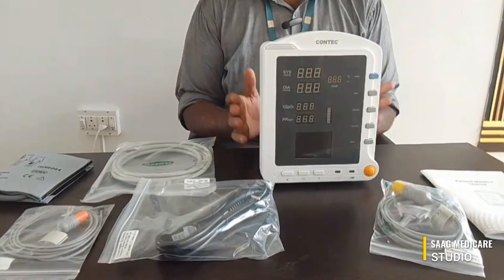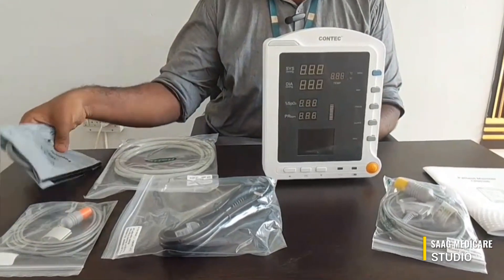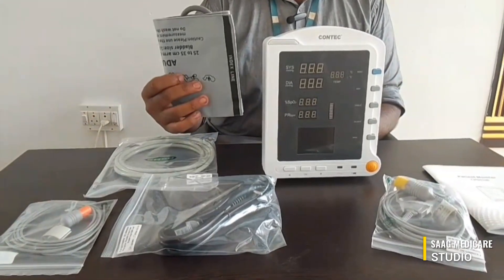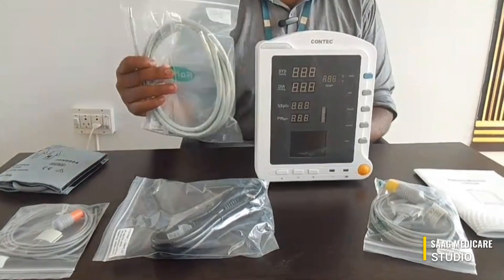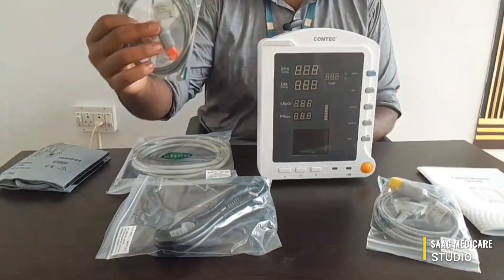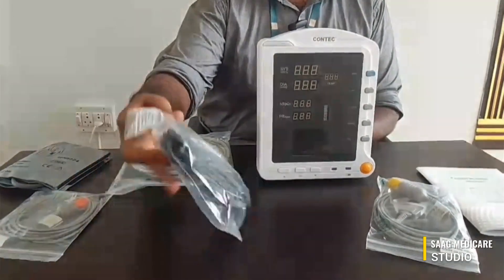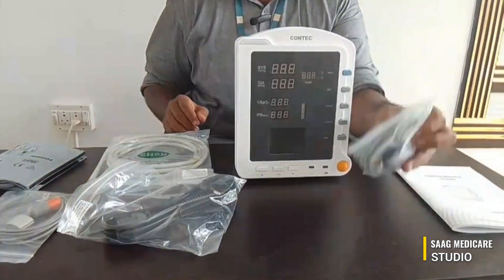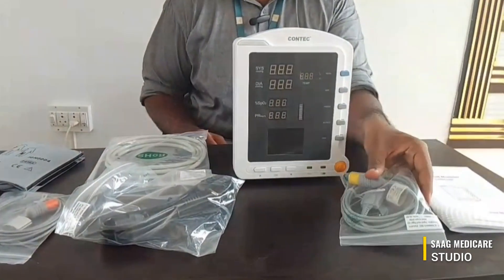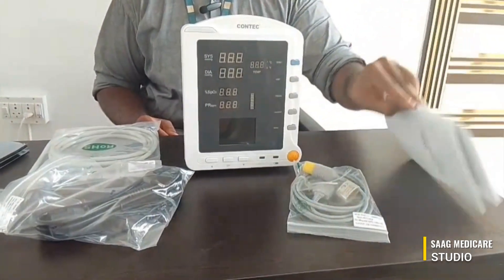This is our device. Along with the device we get an NIBP cuff, NIBP tube, a temperature sensor, a power cord, an SpO2 sensor, and a user manual.